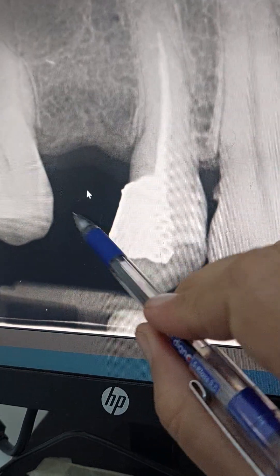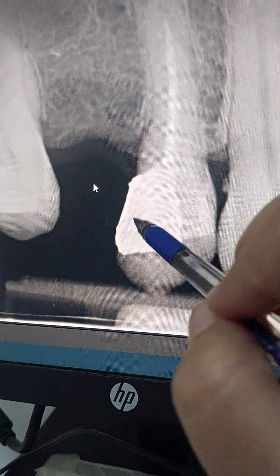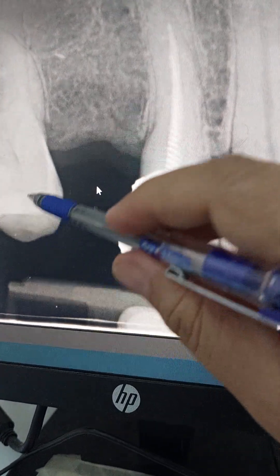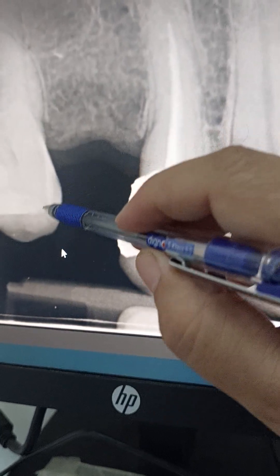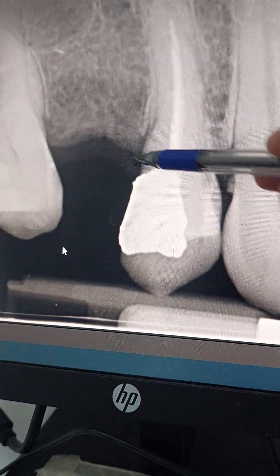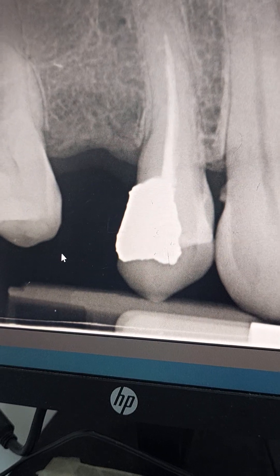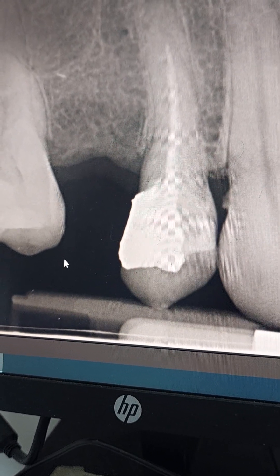We have a smaller mesial space and a large tooth which is the normal size. So the technician reduces the tilt of the pontic, reduces the bulge mesially, and creates a smaller contact. But checking the embrasures — they must not be interrupted, because embrasures are very important for the health of the soft tissue beneath them.